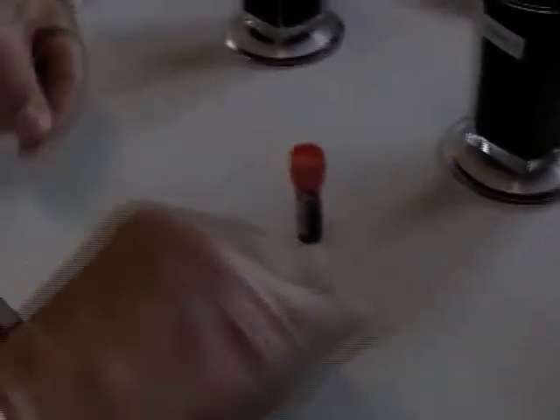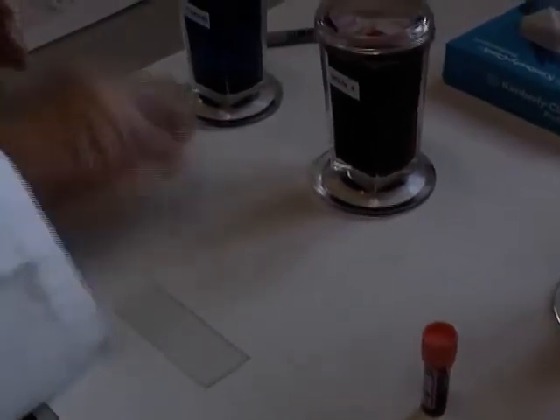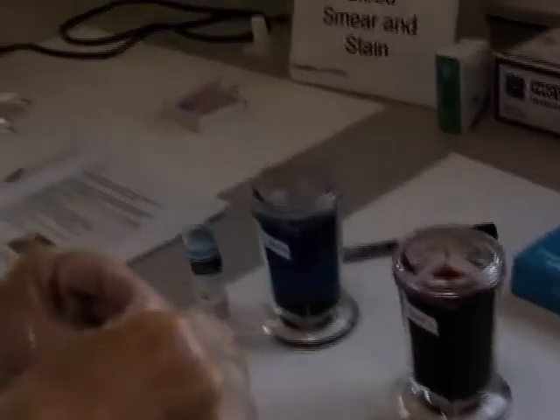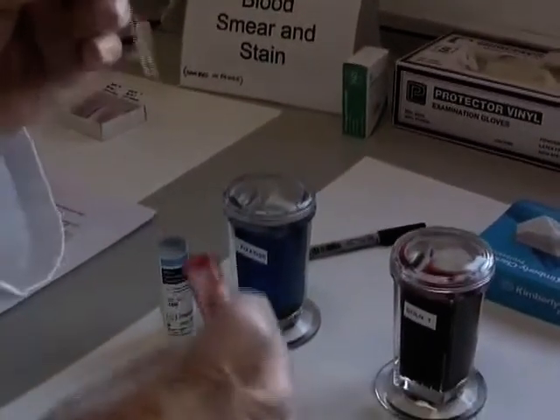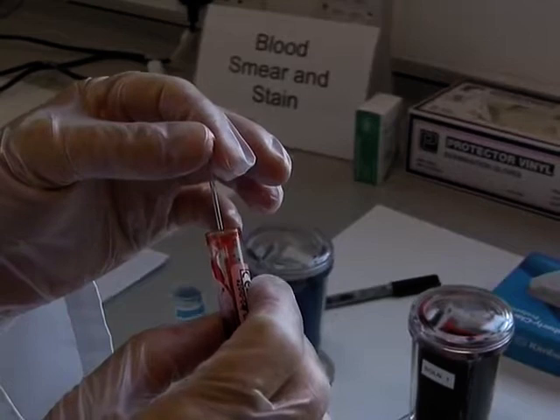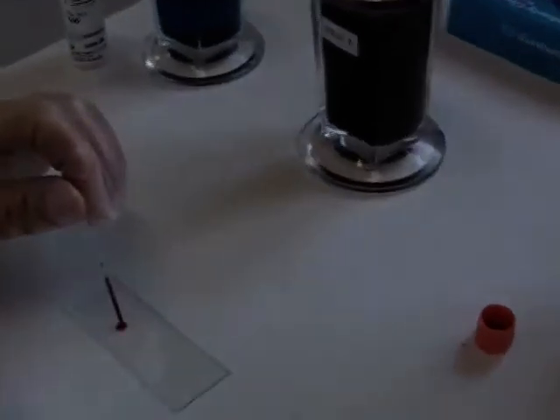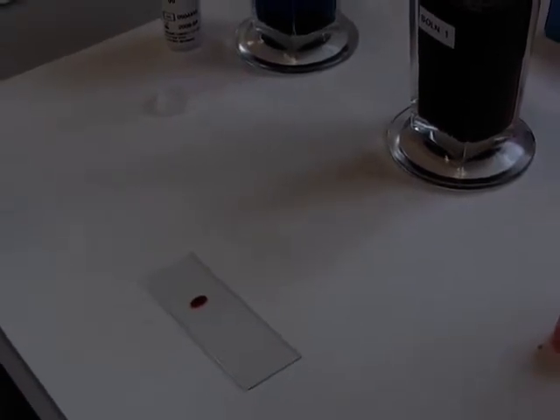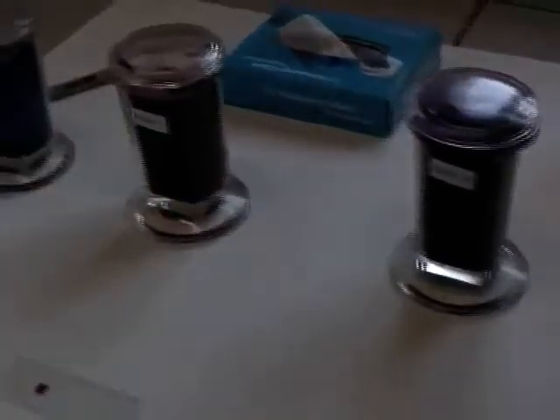You will need at least a couple of slides and your sample of blood. Once again use capillary action as you would do for PCV, and dot your blood sample about two thirds of the way. Dispose of your capillary tube in the glass waste.